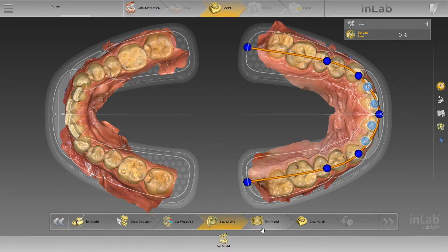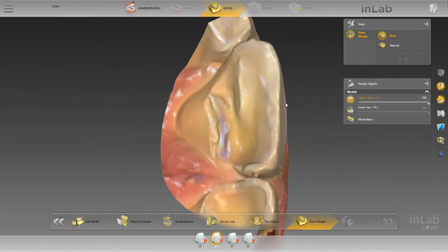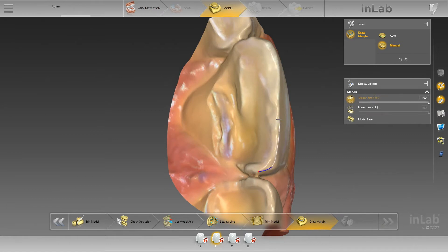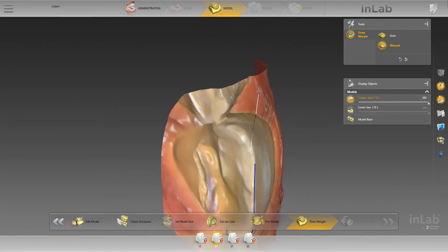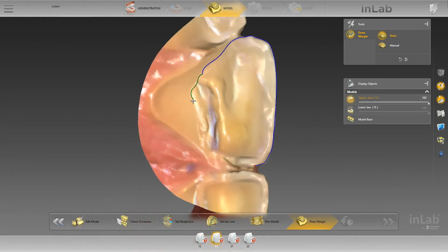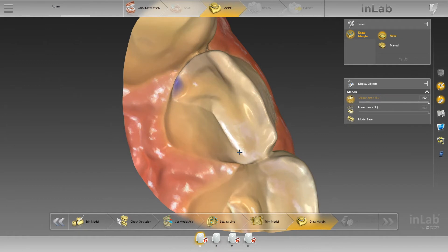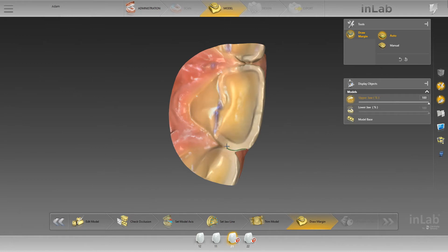We're just following through the normal inLab workflow, same as the CEREC workflow. I'm going to select each of these teeth, selecting over the area which is remaining — the natural tooth. These teeth are untouched other than the wear. What we're going to produce will effectively become part of the model for us to print off. I'm selecting around each tooth as if it's a margin of a cavity — and effectively it is, it's a wear cavity.